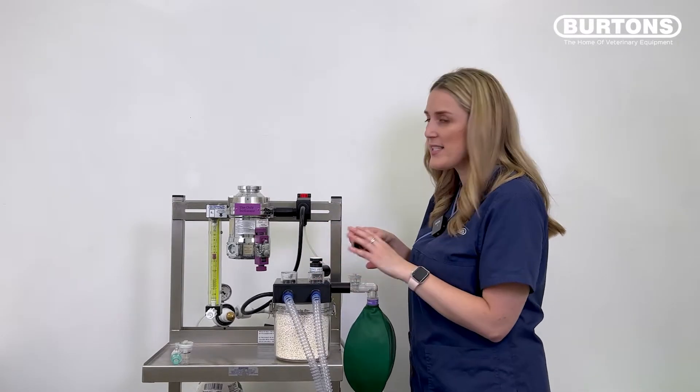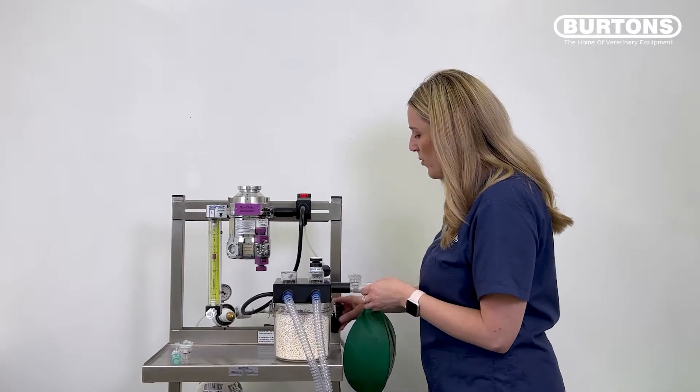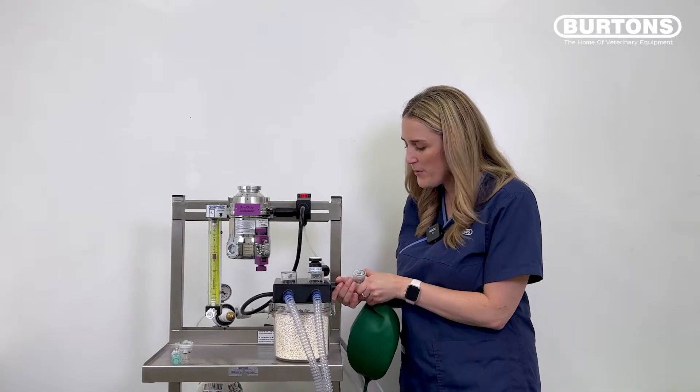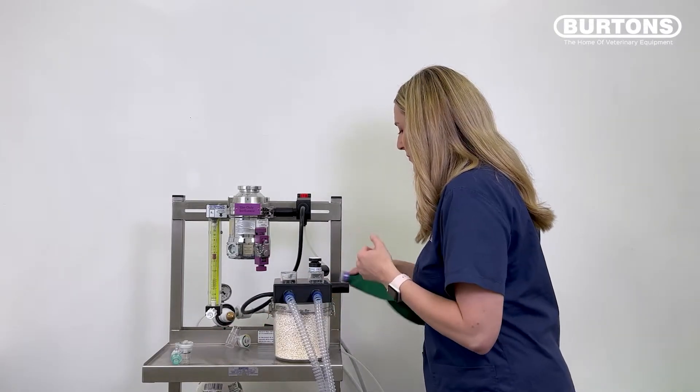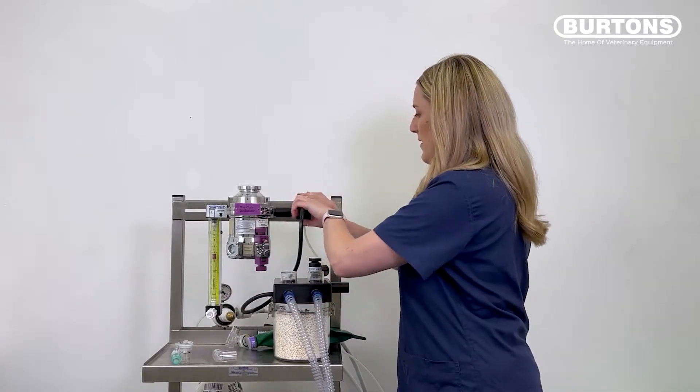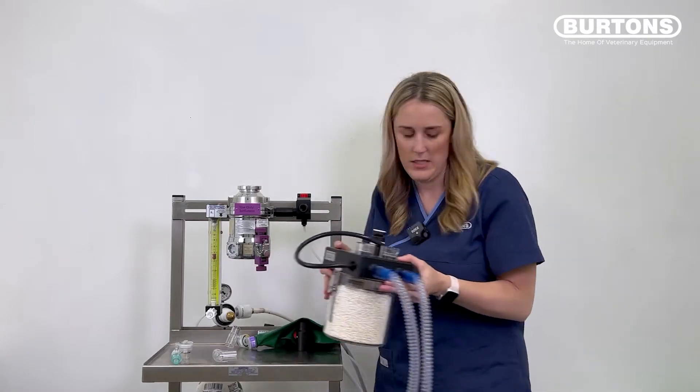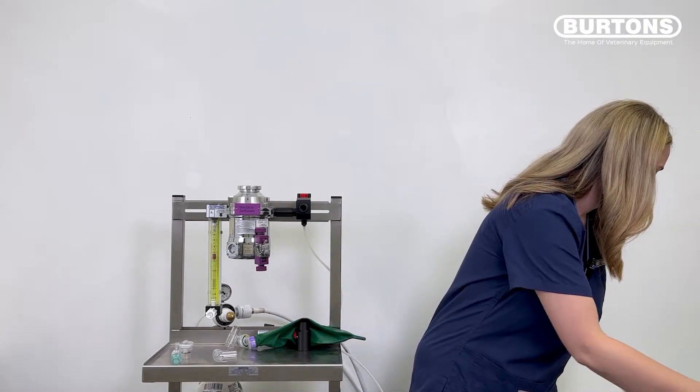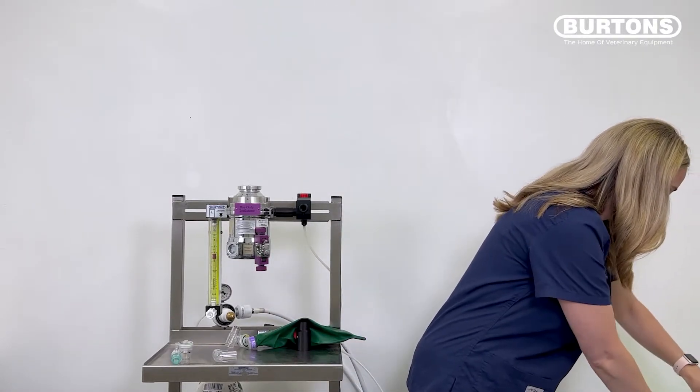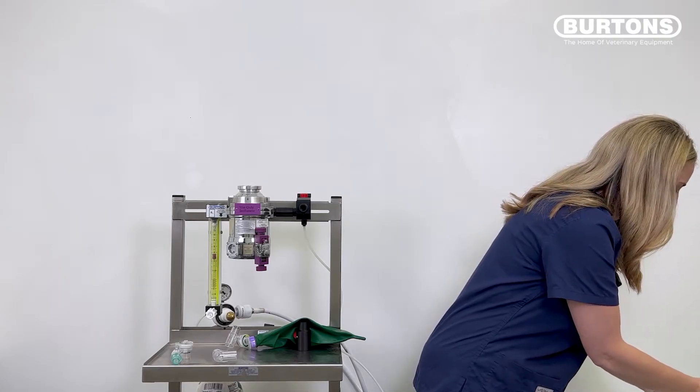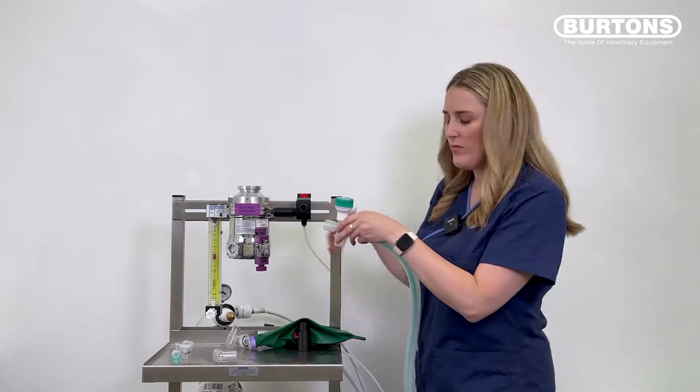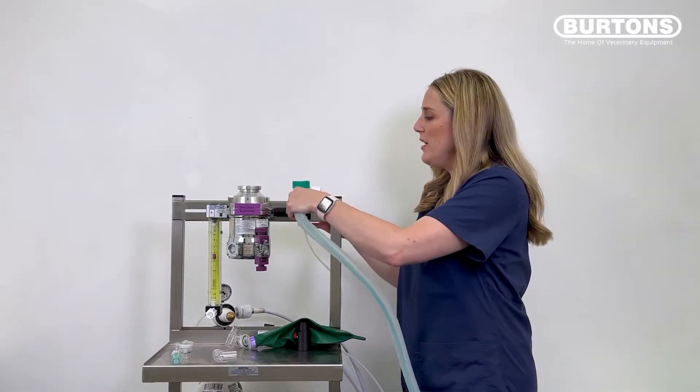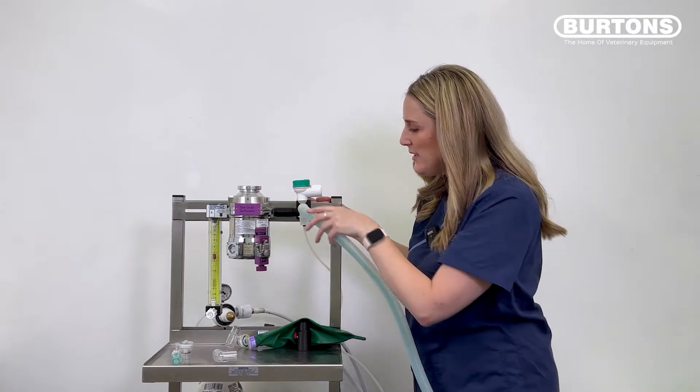So you can use these accessories on a range of breathing systems. So I also have a Bain breathing system here that I'm going to use. Just to move this off the table.